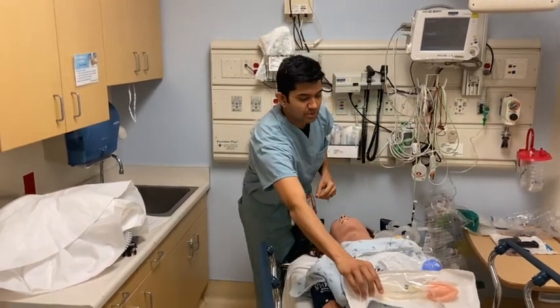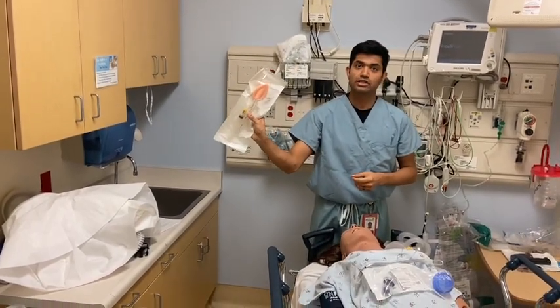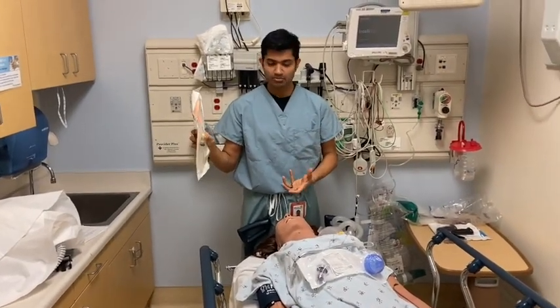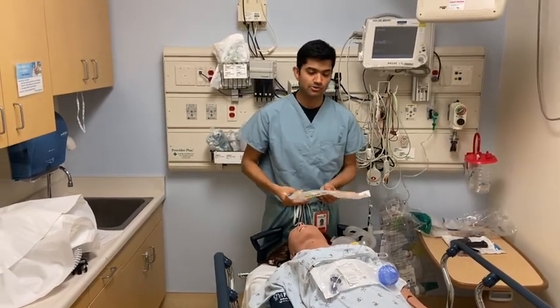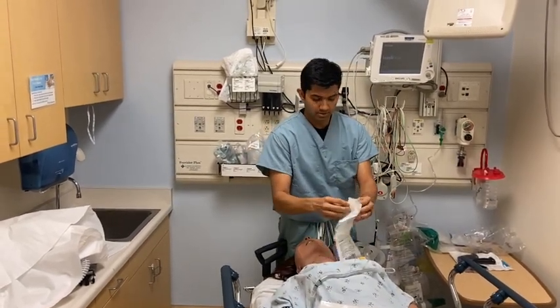And then the other device we're going to have, you might have seen the airway kits for these patients, is an LMA. The reason we want to use an LMA is in the setting of a failed airway, where we cannot intubate but want to get the patient's oxygen levels up without having to use the ambubag and generate aerosol.